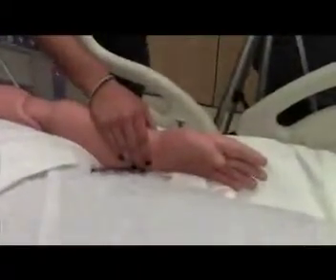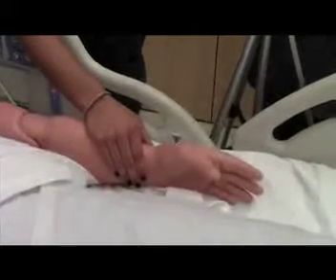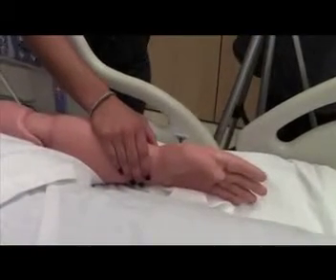And so there's a lot of issues in medicine where you don't always want someone practicing something for the first time on a person, on yourself. This makes them ideal, particularly for practicing skill sets like placing an IV, for example, in nursing, or even something as basic as learning to auscultate the lungs, where to put your stethoscope. But also when it comes to giving medications and drug effects, we do a lot with that, teaching students the basic pharmacology of a substance and the effects, so cause and effect.